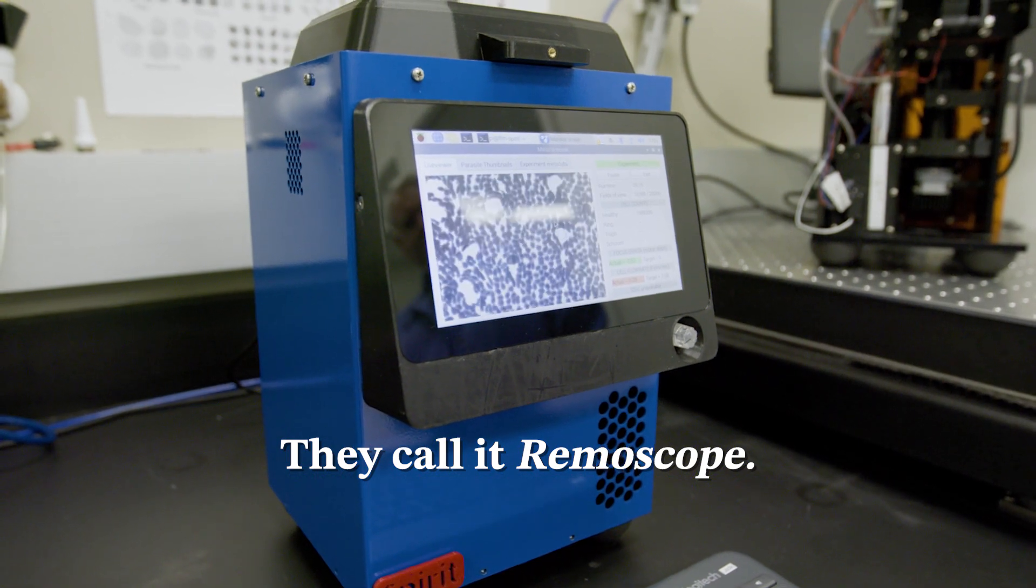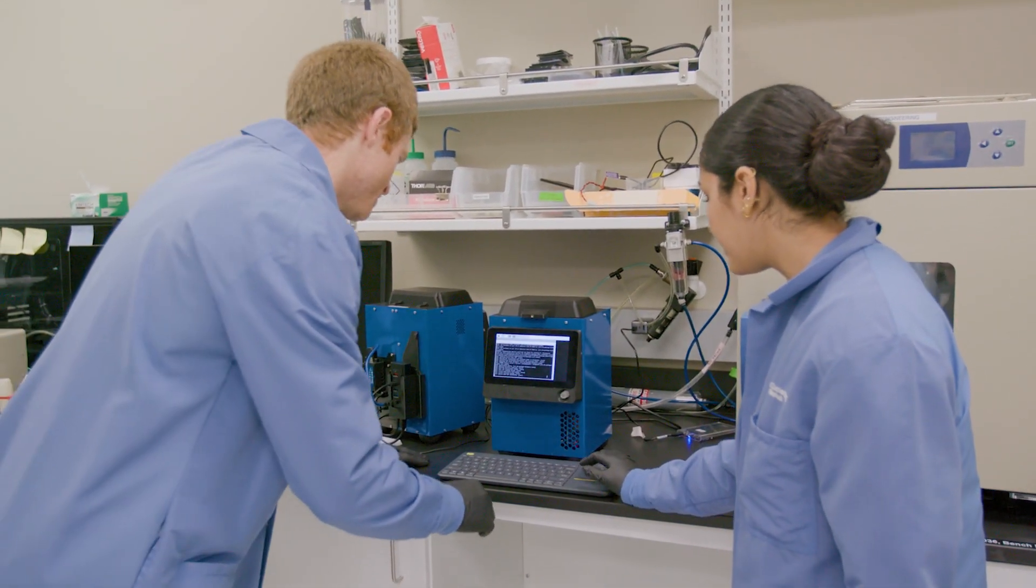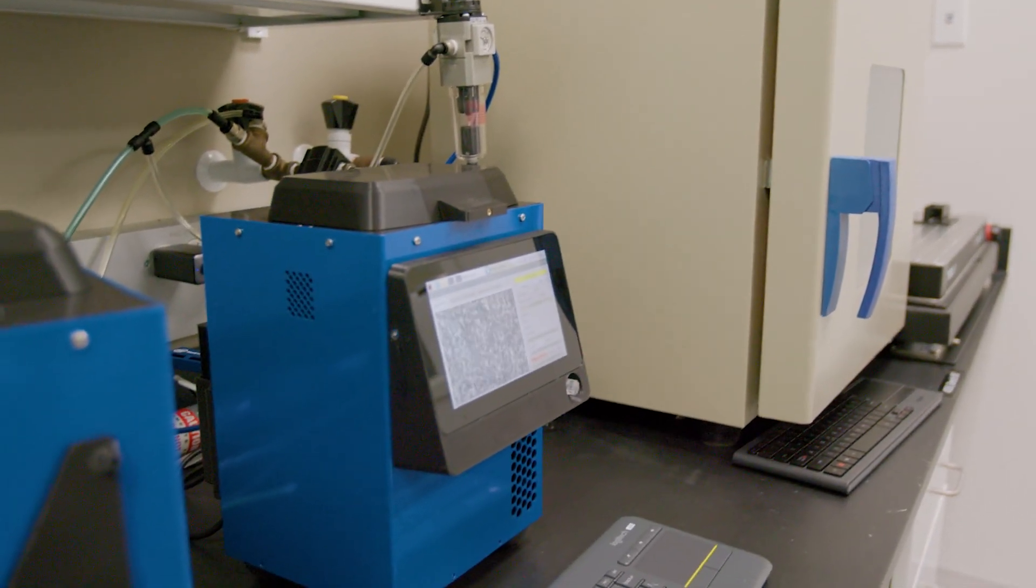We built an AI-driven, low-cost microscope to diagnose malaria that doesn't get tired. It's trained on millions and millions of parasites that can do it much faster and better than any human ever will, which would help people get the effective medications they need faster when they're infected.